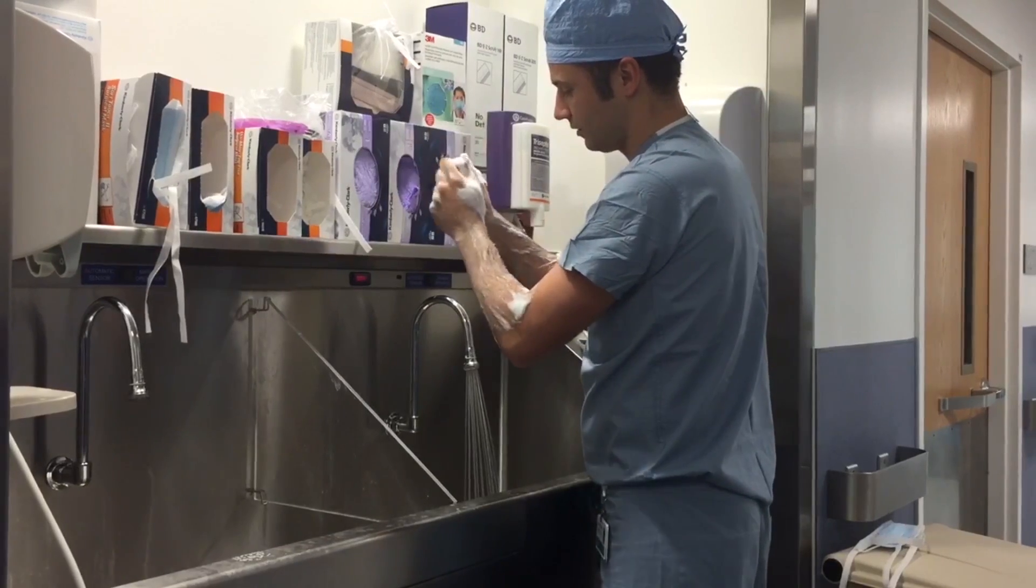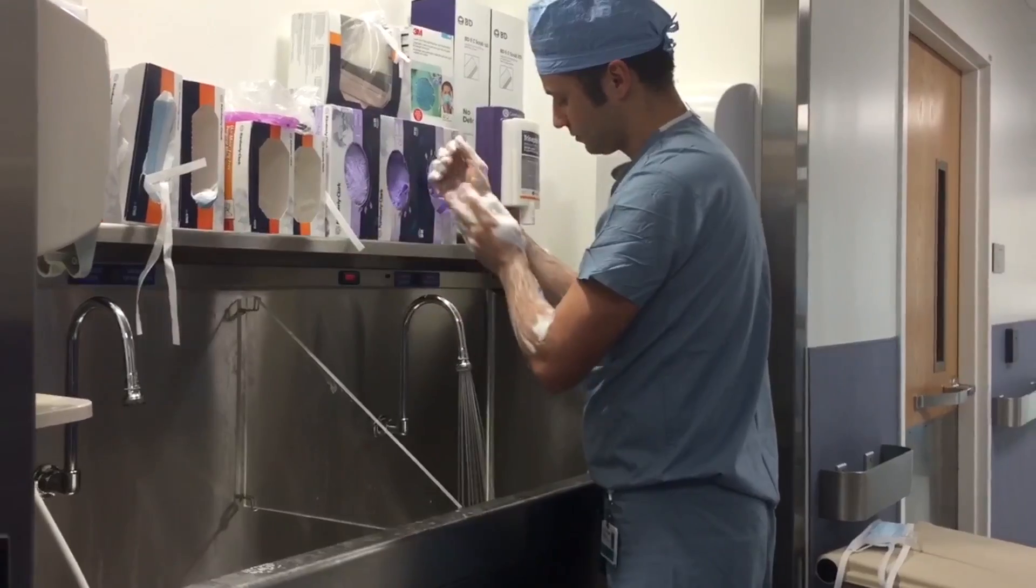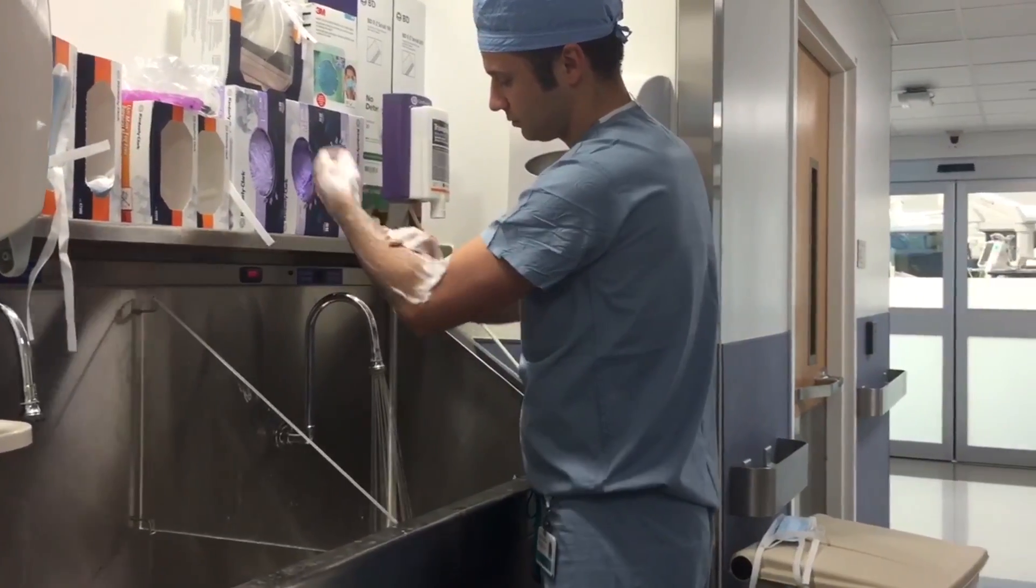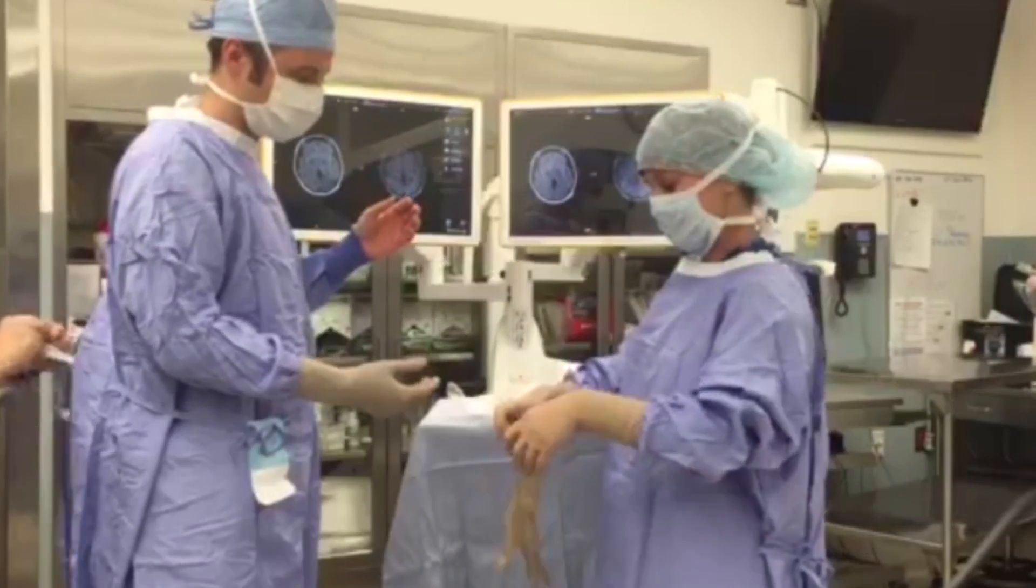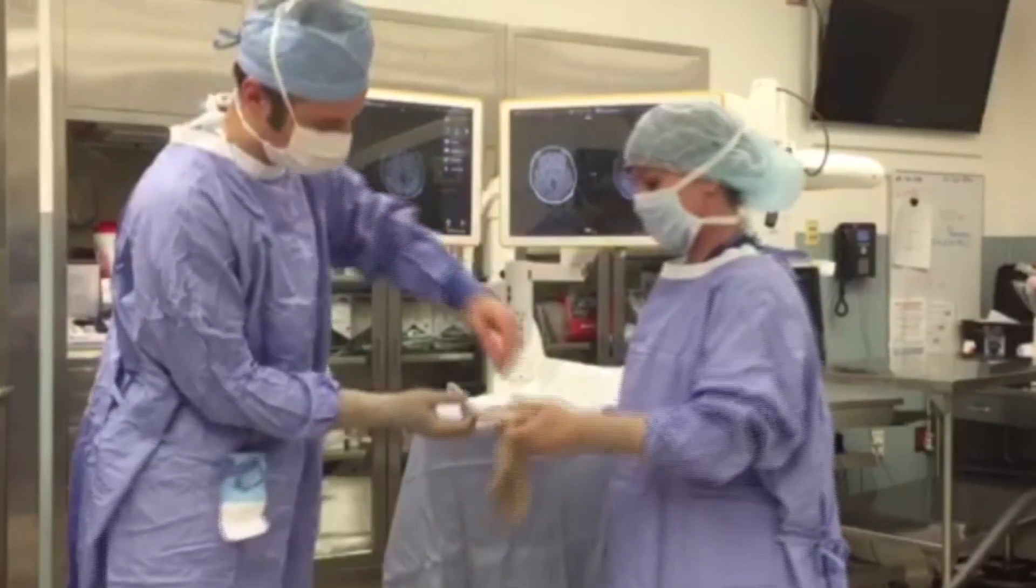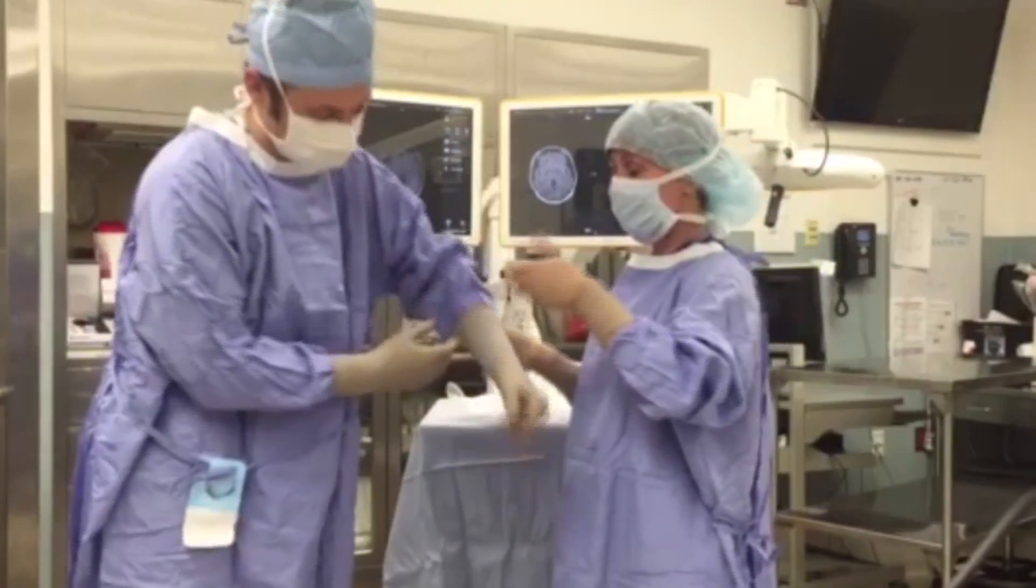In a sterile operating room, our software uses cutting-edge motion sensing technology to allow users to control the viewer using simple hand gestures, eliminating the need for re-scrubbing or using another person solely for physical input.